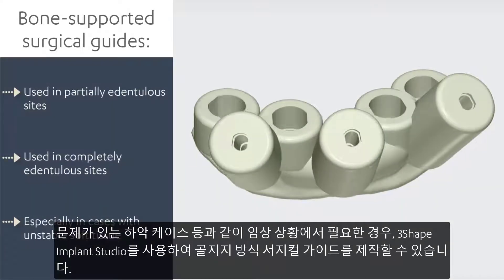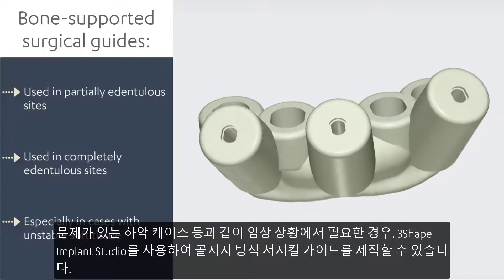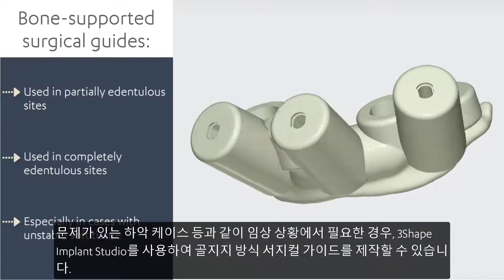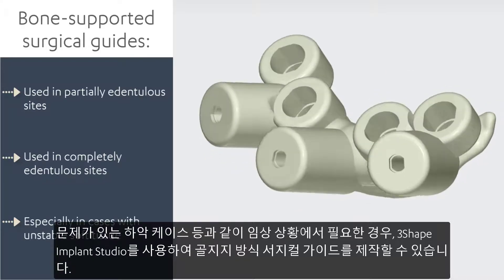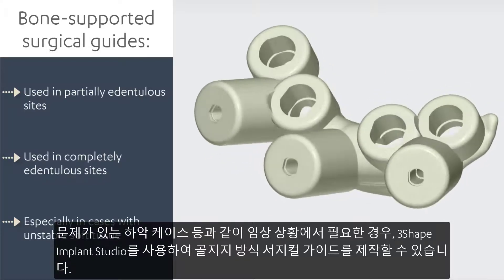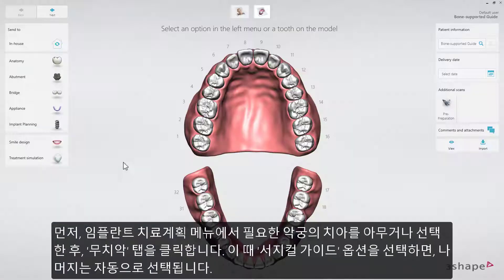In a case where the clinical situation dictates it, for example in a problematic mandibular case, you now have the possibility to design a bone-supported surgical guide in 3Shape Implant Studio.